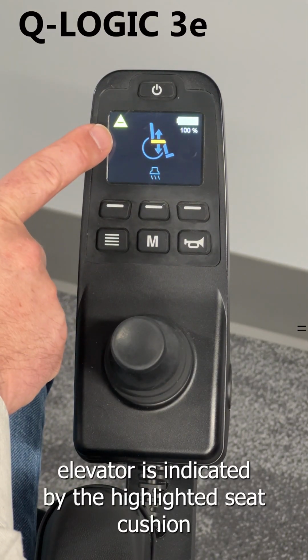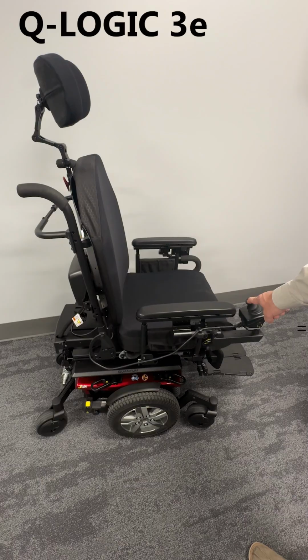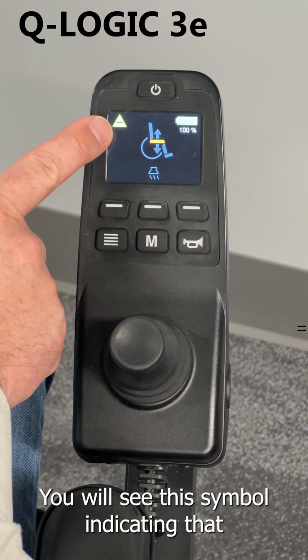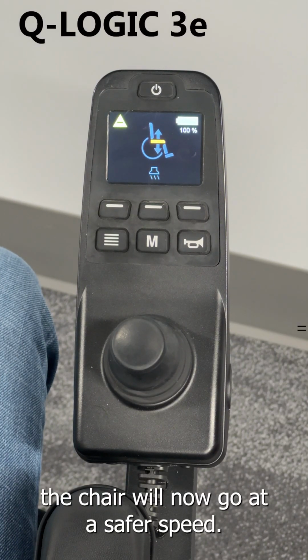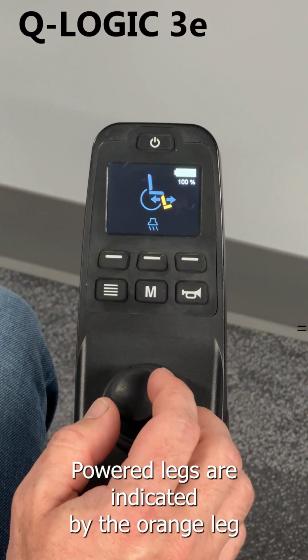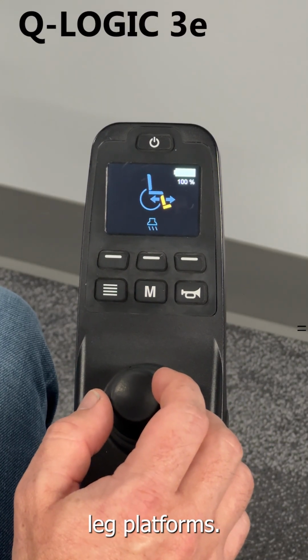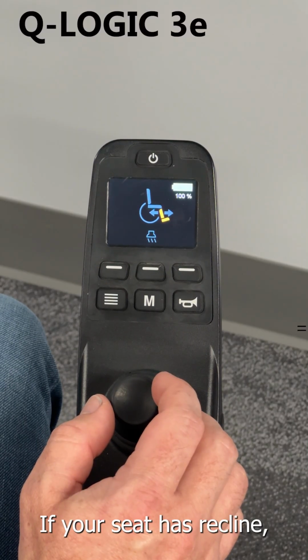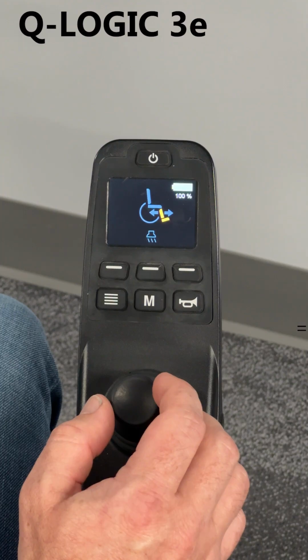The seat elevator is indicated by the highlighted seat cushion. When elevated, you will see this symbol indicating that the chair will now go at a safer speed. Power legs are indicated by the orange leg platforms. If your seat has recline, that is indicated by the orange backrest.